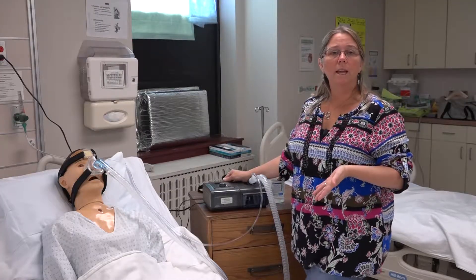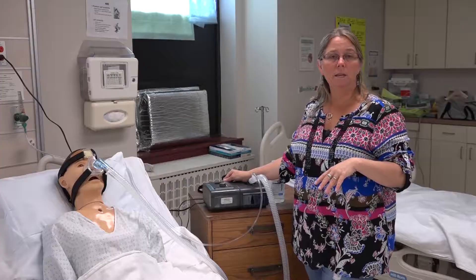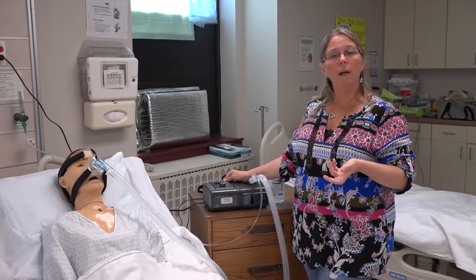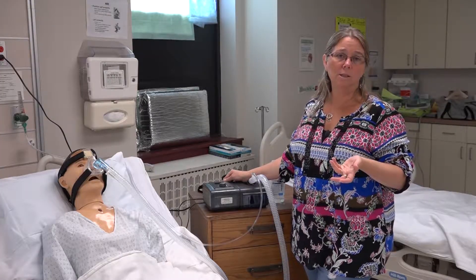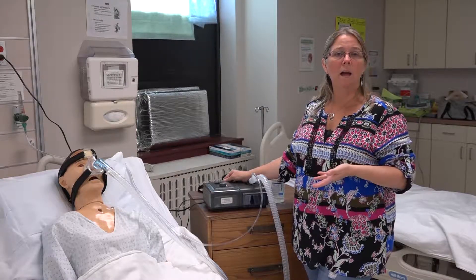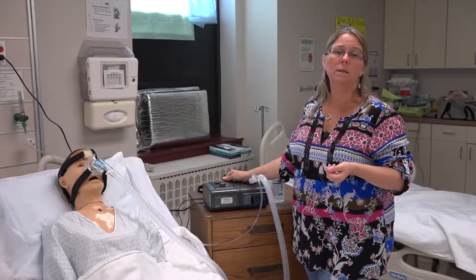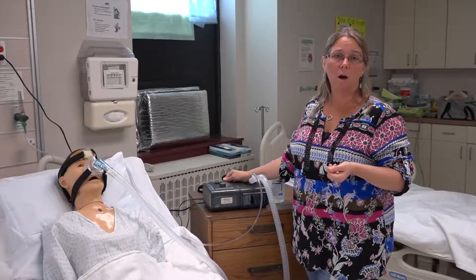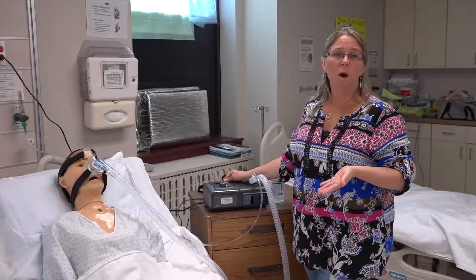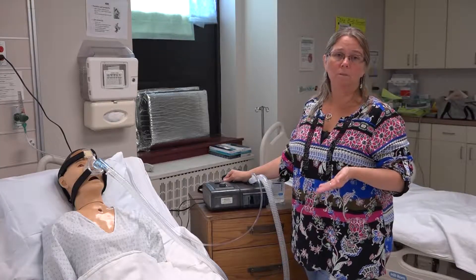Some patients will also have humidity added, either with a heated element or a pass-over humidifier. Anytime you use a humidifier on a CPAP or BiPAP, you need to make sure you're only using sterile water here in our facility, or distilled water for patients at home. Never, ever use tap water.